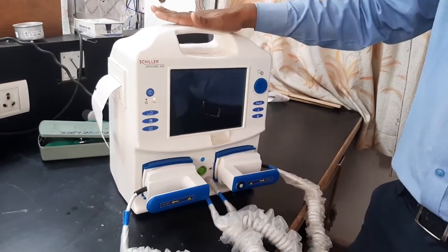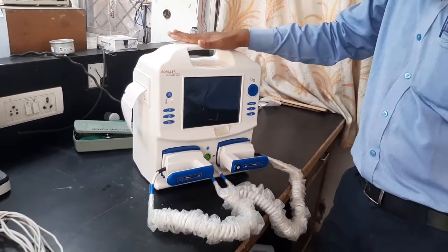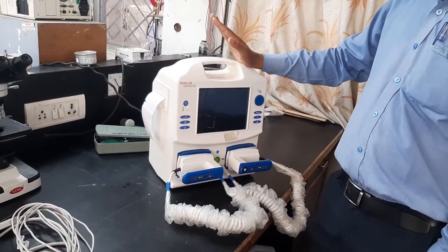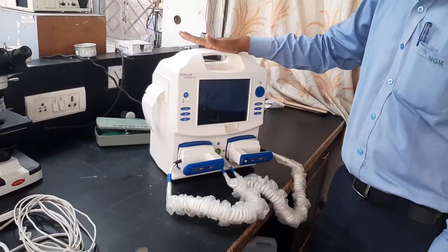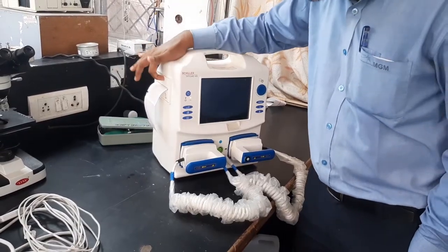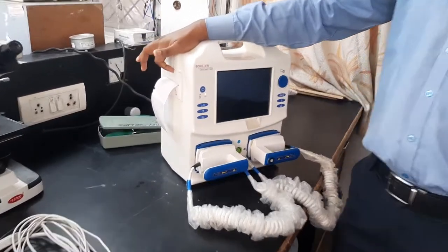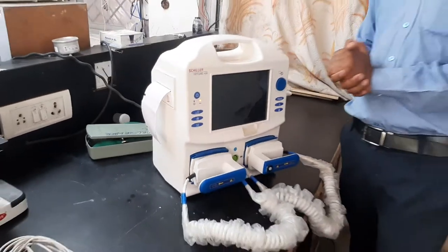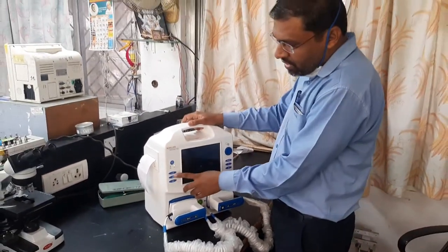How to operate this defibrillator, how to select the energy, how to deliver a shock, what is synchronous mode, what is manual mode, how to install graph paper for printing — all these things we are going to cover today. First of all, your defibrillator should be on charging — it should be connected to the power supply.